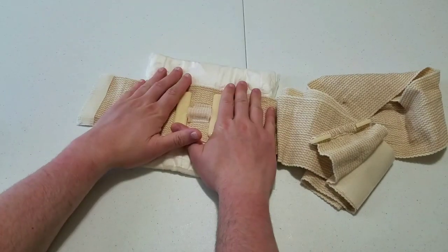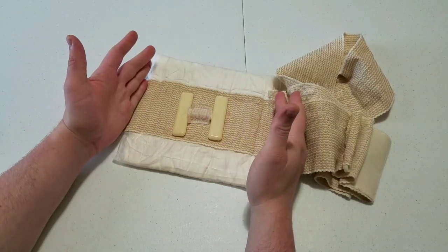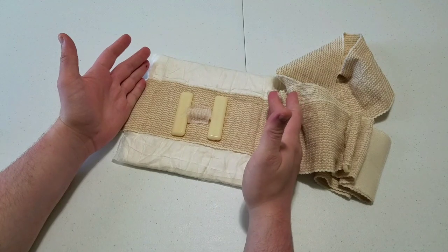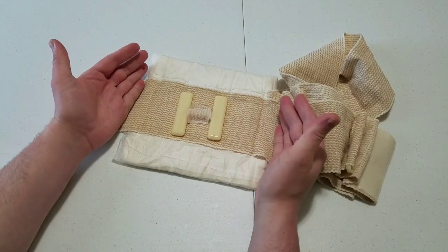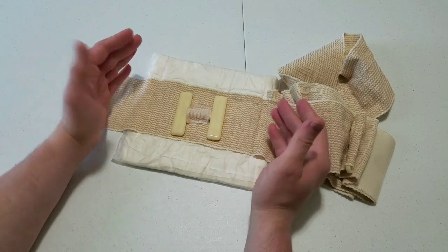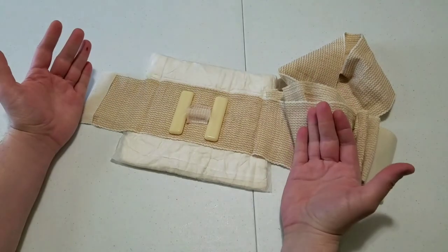You figure most American males are going to be somewhere around 50 inches around their torso. I can't even get this thing around more than one and a half to two times. There's just not enough wrap here for the size pad they put on this thing. While it works well on a thigh because you do have enough wrap for that on most people, it's really meant for abdominal injuries — but it's not long enough to really do that effectively. It doesn't work well on smaller parts of the body because it's too big for that. It's too big for little injuries; it's too little for big injuries. It's not well designed.